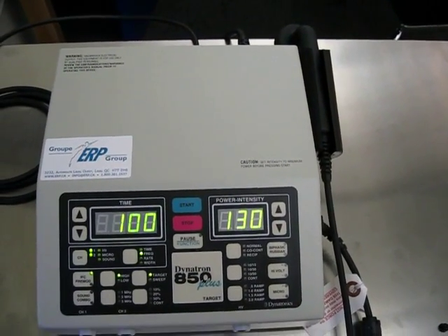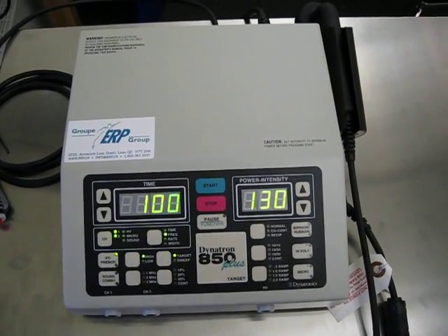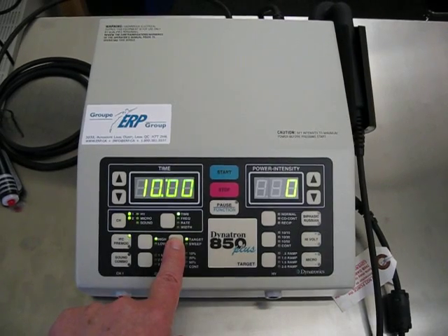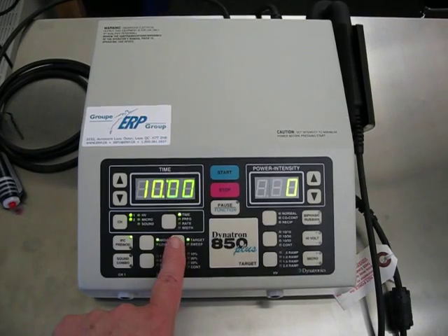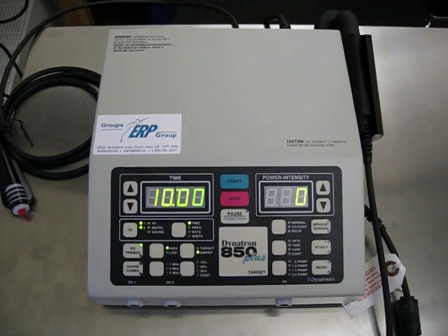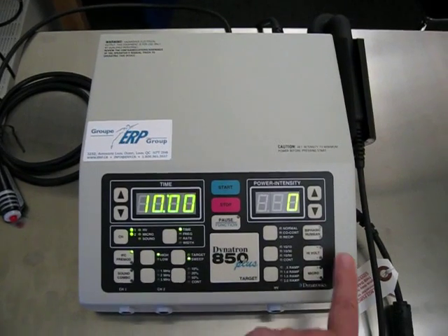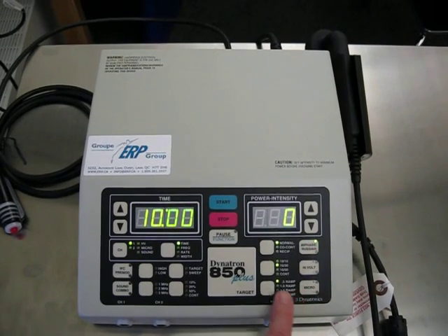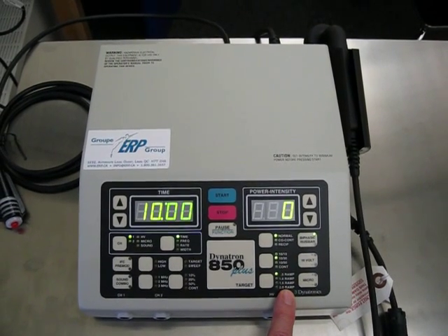The physiotherapist is going to choose what she's going to have you put in based on what the person needs or what kind of things that the client needs. At this point, you would then decide whether you're going to do a target or a sweep. Remember, a target is a very small area between the four electrodes and sweep is a larger area. If you are going to do biphasic or Russian, you're going to be using the toggles over here, and you would have duty cycles and ramp indicated here.